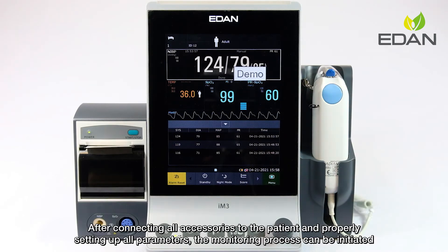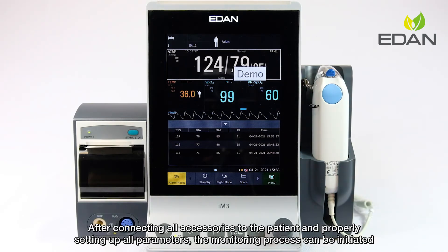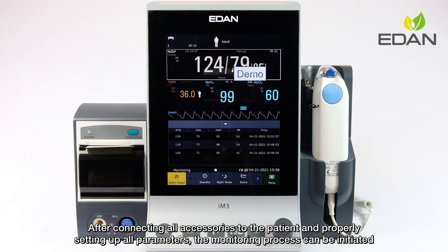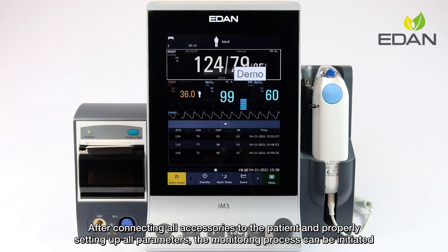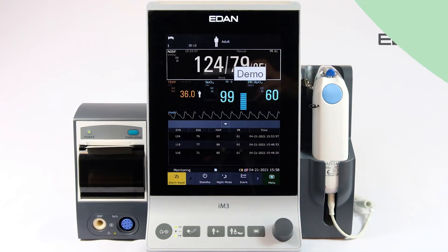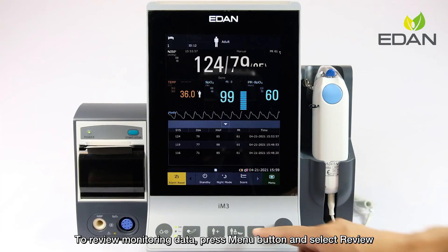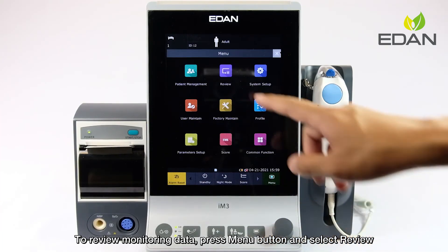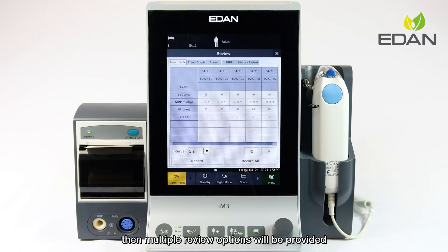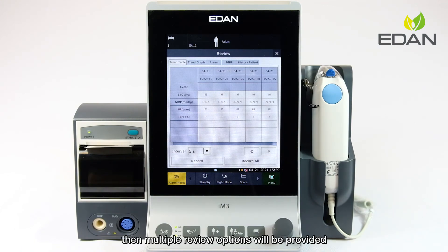After connecting all accessories to the patient and properly setting up all parameters, the monitoring process can be initiated. To review monitoring data, press the menu button and select review. Then multiple review options will be provided.